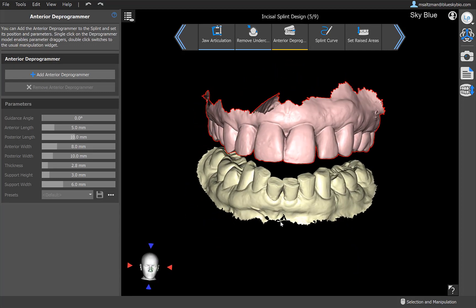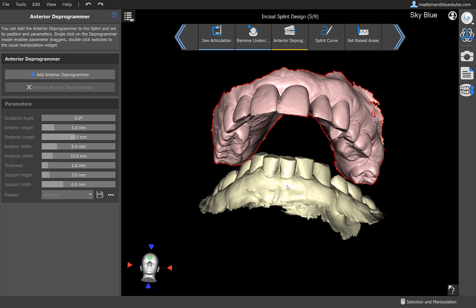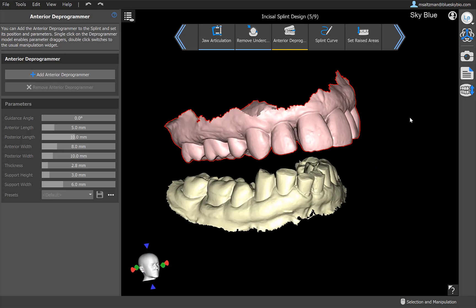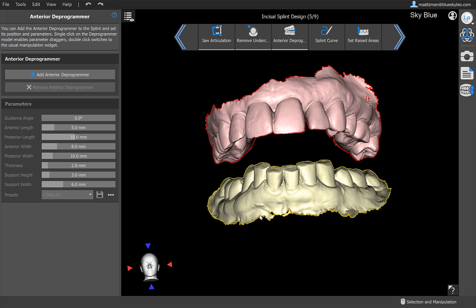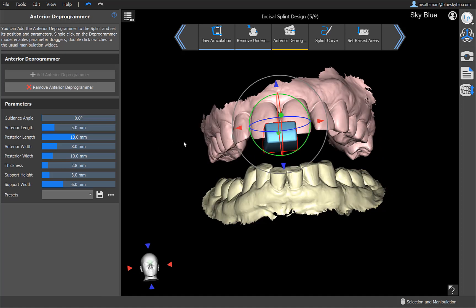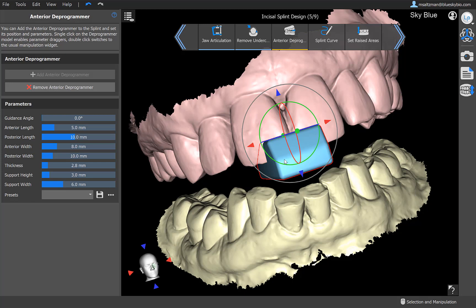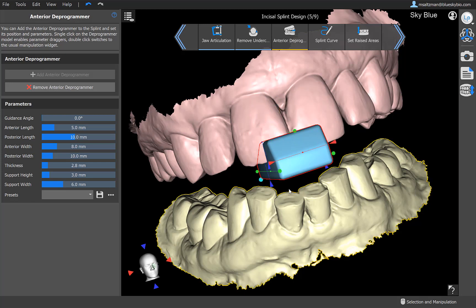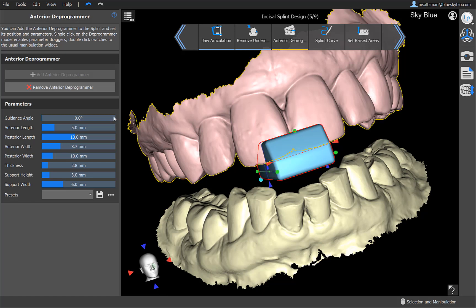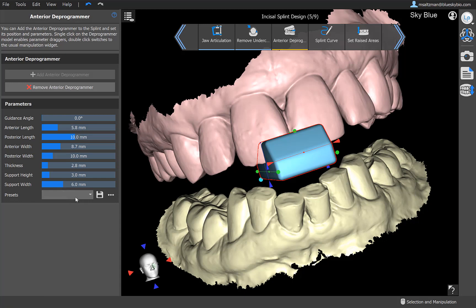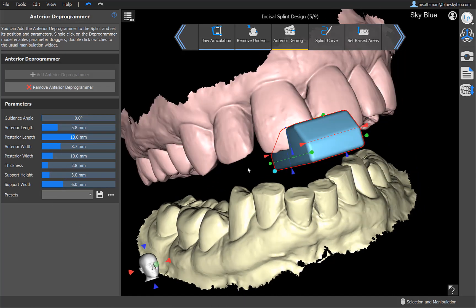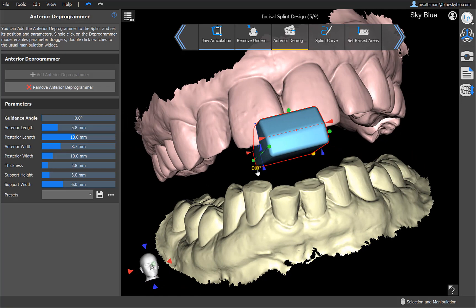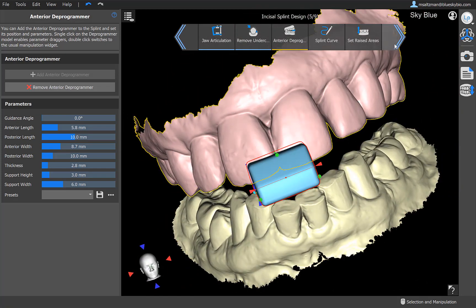And now we're at the step that we could add an anterior deprogrammer. And again, if you're not interested in creating a splint with an anterior deprogrammer, then the fastest way of doing this is using the second process flow that we saw on the intro screen. But at this point, we'll present the functionality with the anterior deprogrammer. Adding it is super simple. Just click the add button. And the widget now, we have a widget that we are used to in terms of movement. You could also click it again and now you have a widget for resizing. So any of the dimensions that we have on the left hand side, you could resize on screen. Again, use the slider, enter the value that you want, or as I mentioned earlier, use the presets function if you want to actually share your settings with another user. But whatever presets you use, the software will remember for the next time that you're using them. Once we're happy with our anterior deprogrammer, we could go ahead and click on next.